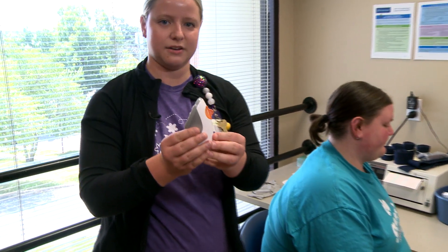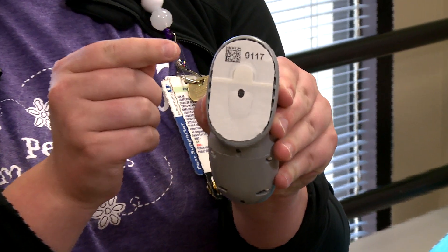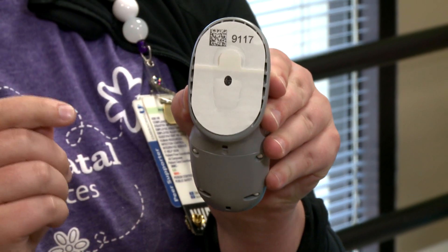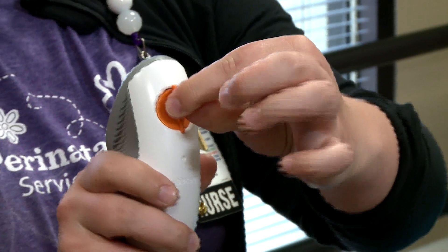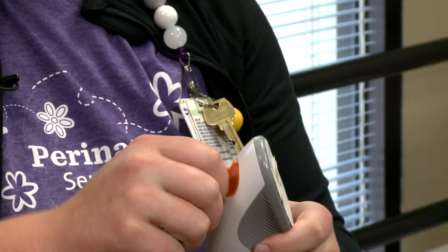This is what the sensor is going to look like. You're going to want to keep this sticker because this will need to be entered into your app to sync. And then you're going to take this orange piece here and break it off — it's a little tough.